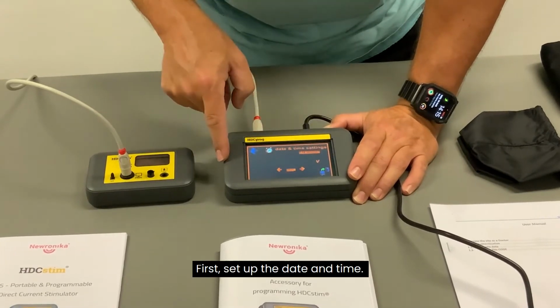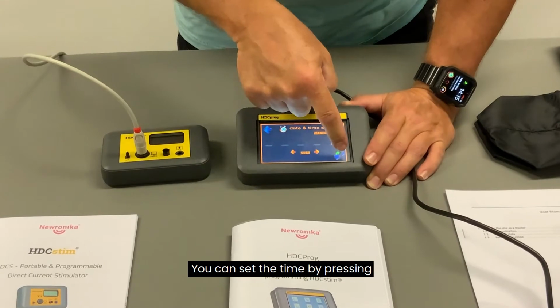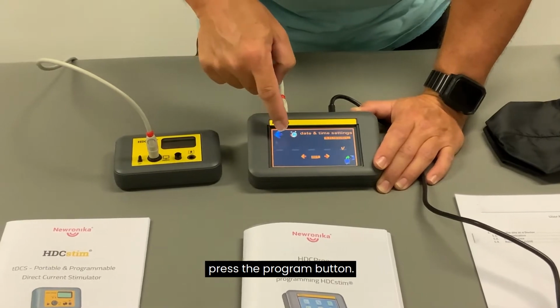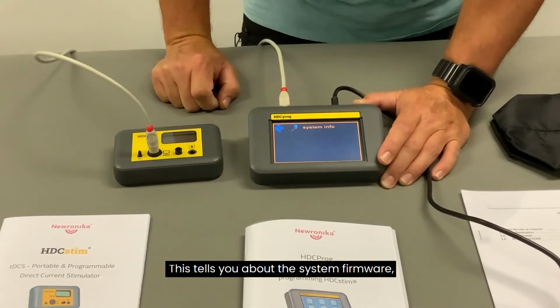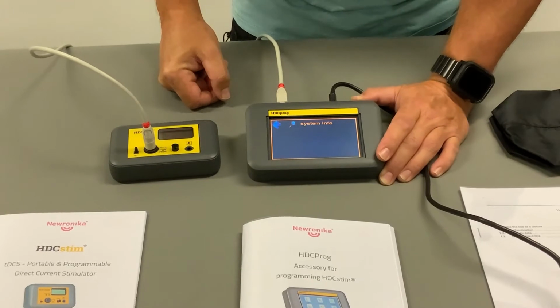First, set up the date and time by pressing on the date and time menu. You can set the time by pressing the description field. To get the time settings onto the other device, press the program button. One of the other options in the menu is the info section. This tells you about the system firmware, and the current date and time last stored in the device.